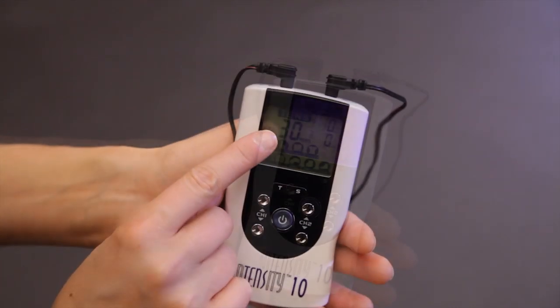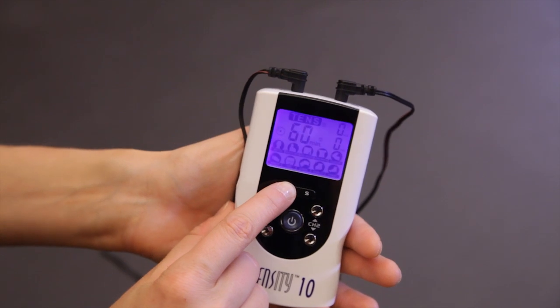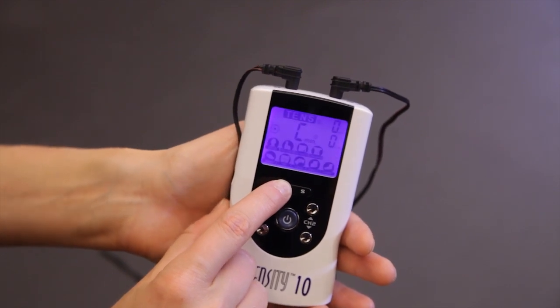There are four treatment times available for the device. The time can be changed by pressing the T button.